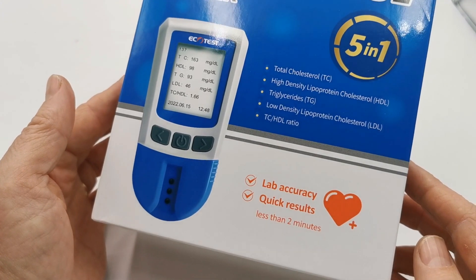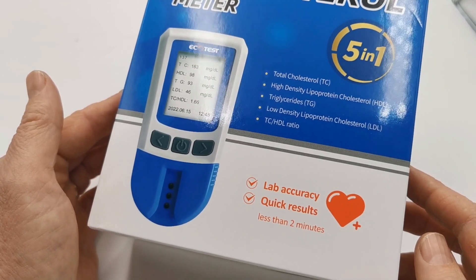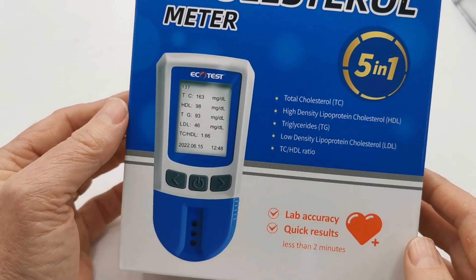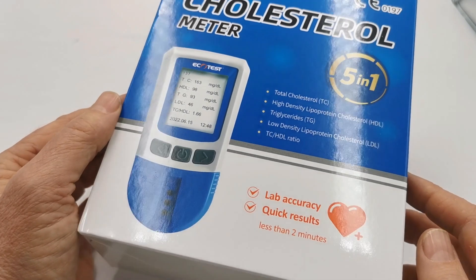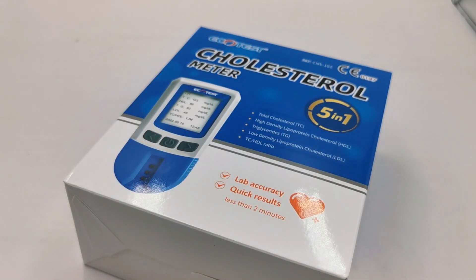Get any one element wrong or try putting an inadequate blood sample into the device and you will get erratic readings. So some tips in the next series of videos to ensure you are successful — please keep watching, please also read the instruction leaflet and manuals provided with the cholesterol meter. If you do so, there's every confidence that you will get an accurate set of cholesterol readings using this test device.